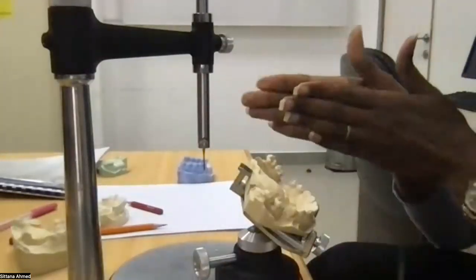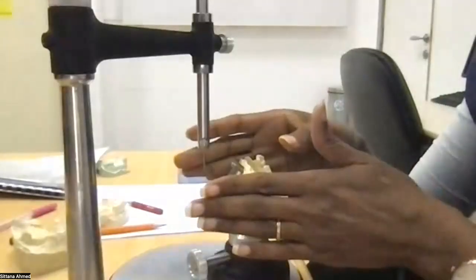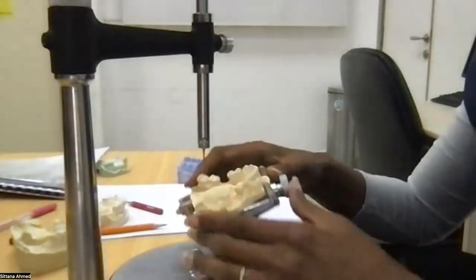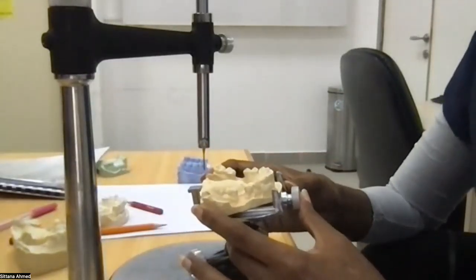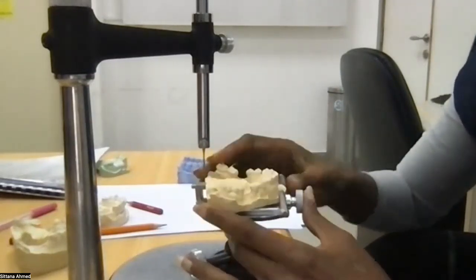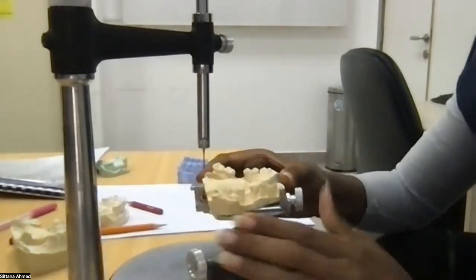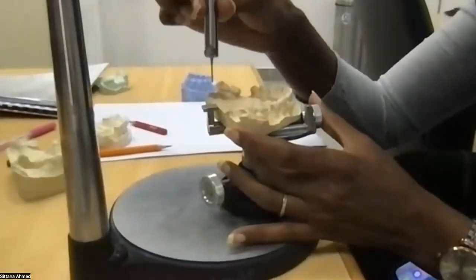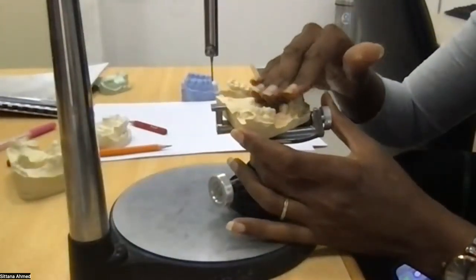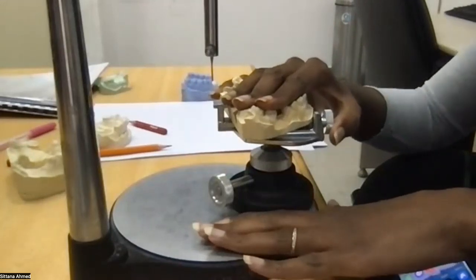So now we did the design. You put the design on and it's in red color and you put it on the surveyor. So once I put it on the surveyor, I need to establish what is my starting point. My starting point should be zero plane, meaning the occlusal plane and not the bottom of your cast. The occlusal plane has to be parallel to the table, to this. The occlusal plane is perpendicular to this, but it's much easier to say it and do it as occlusal plane is parallel to this. It's the same. It's just saying it in a different way.